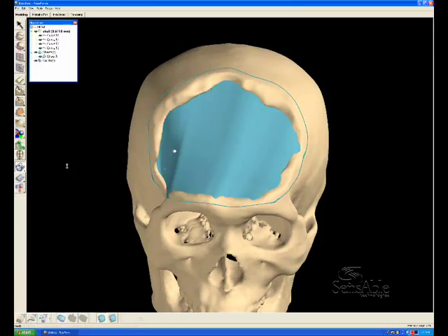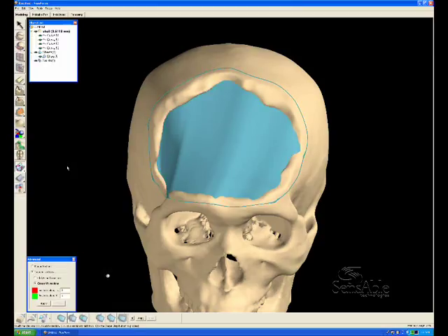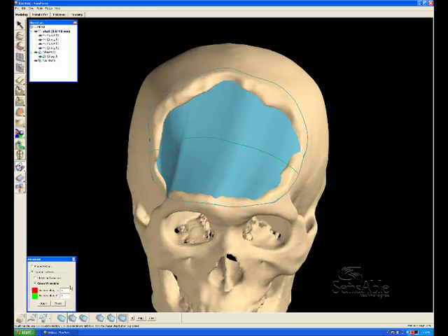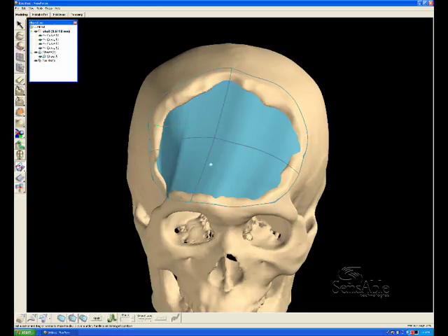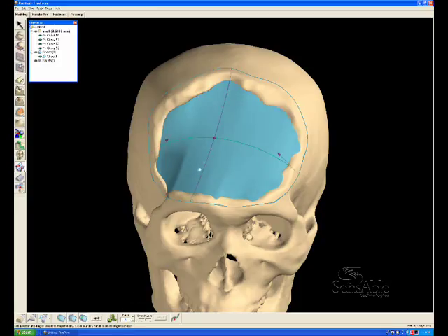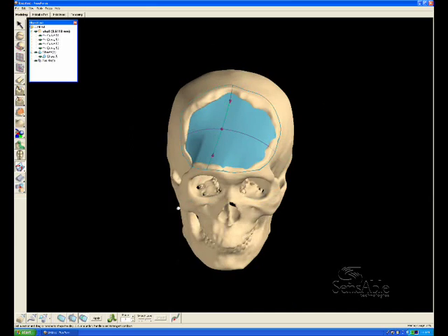We can use the Shape Patch command to establish cross sections for this simple NURB surface. Let's establish one in the U-direction and one in the V-direction. These cross sections have edit points assigned to them. Let's lower the number of edit points to 3, therefore simplifying the number of edit points that need to be moved to describe the complex curvature of this skull patch.